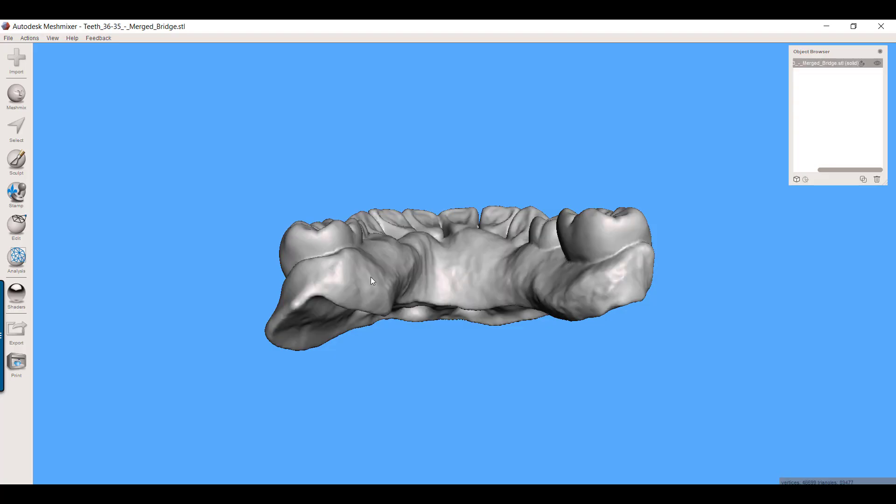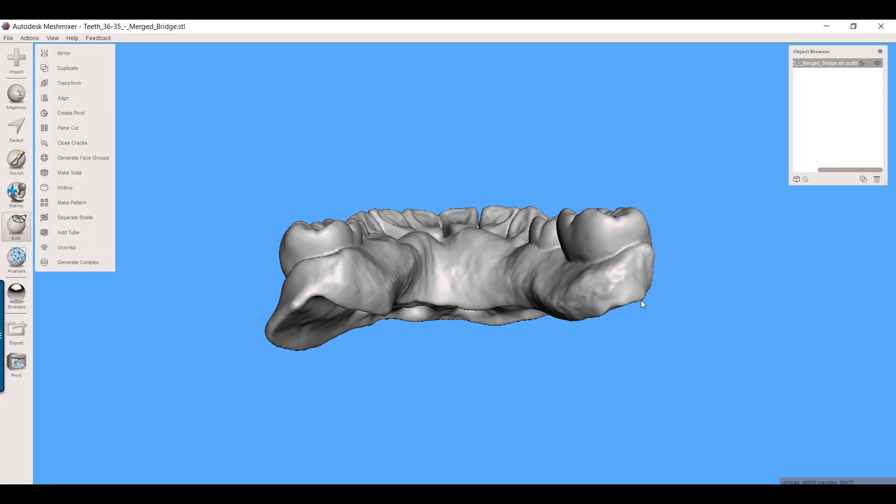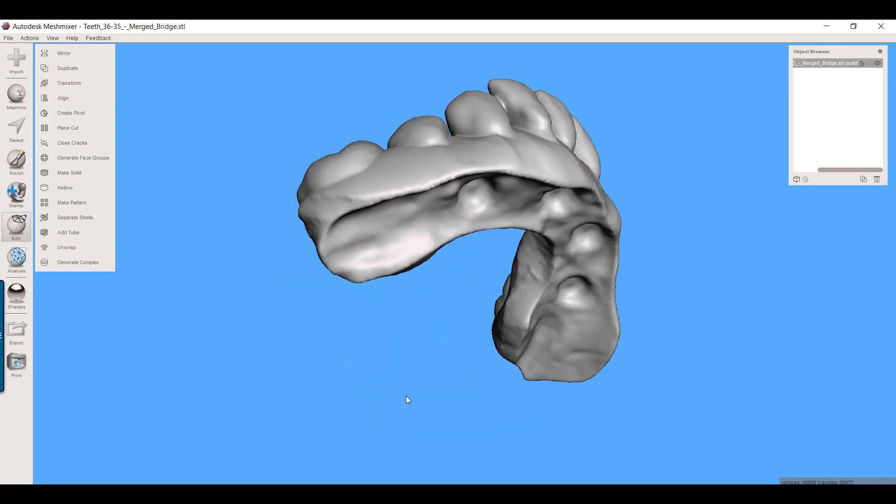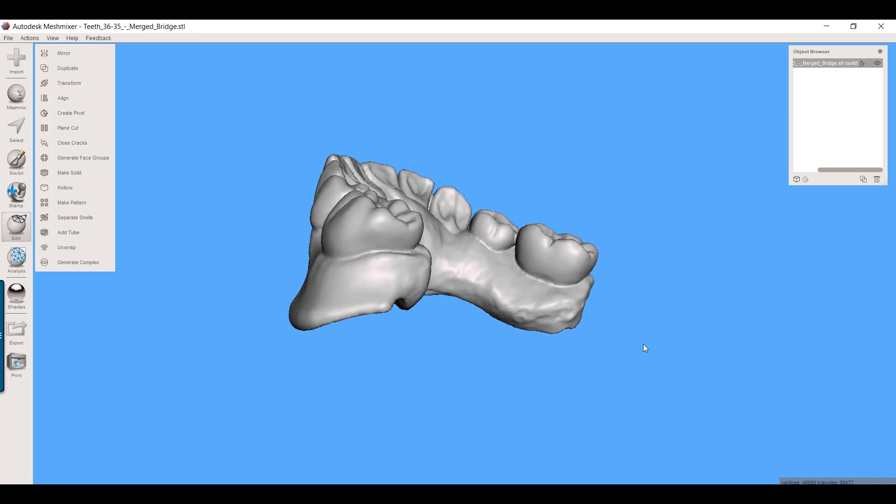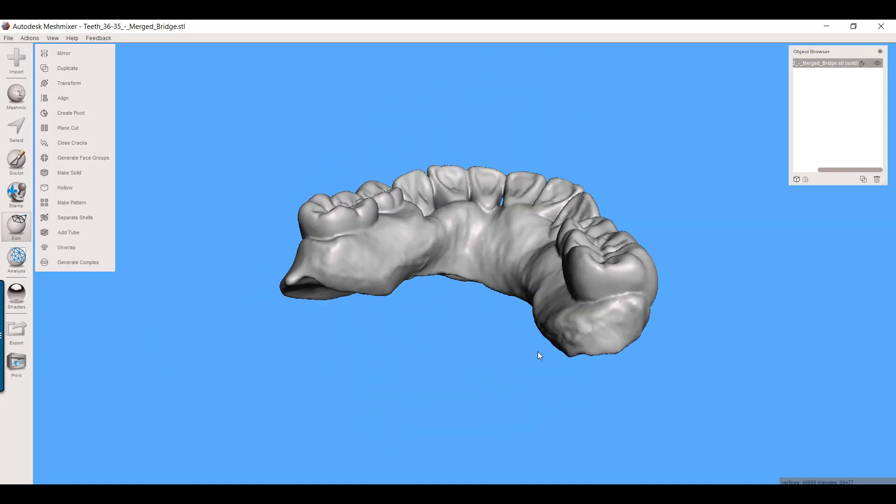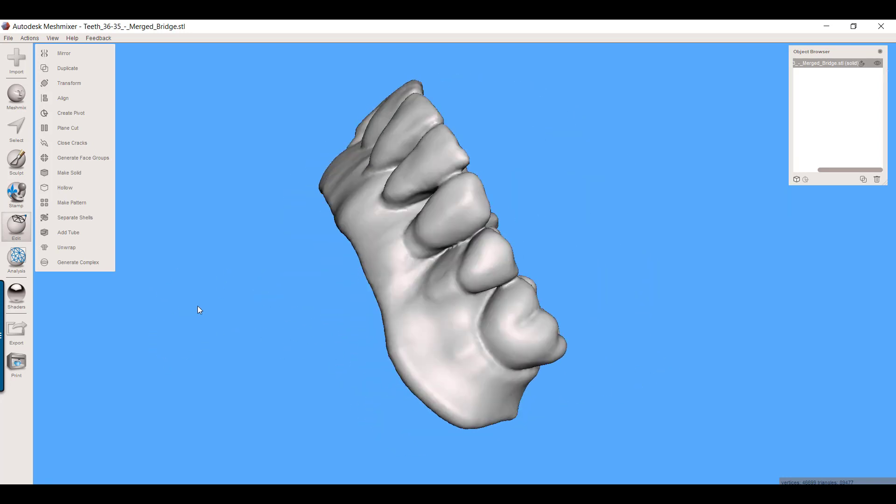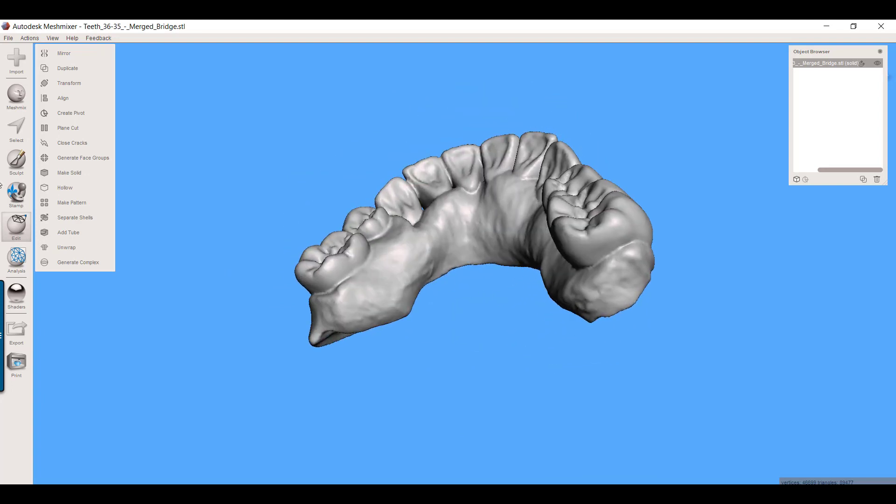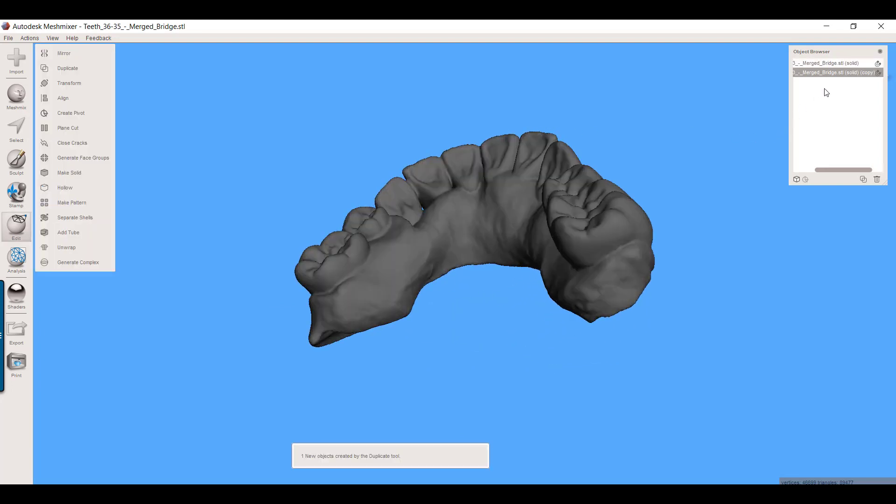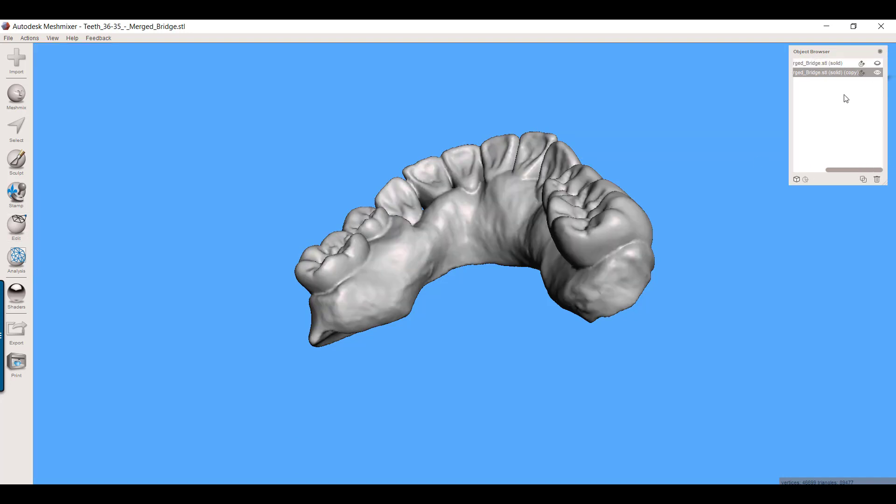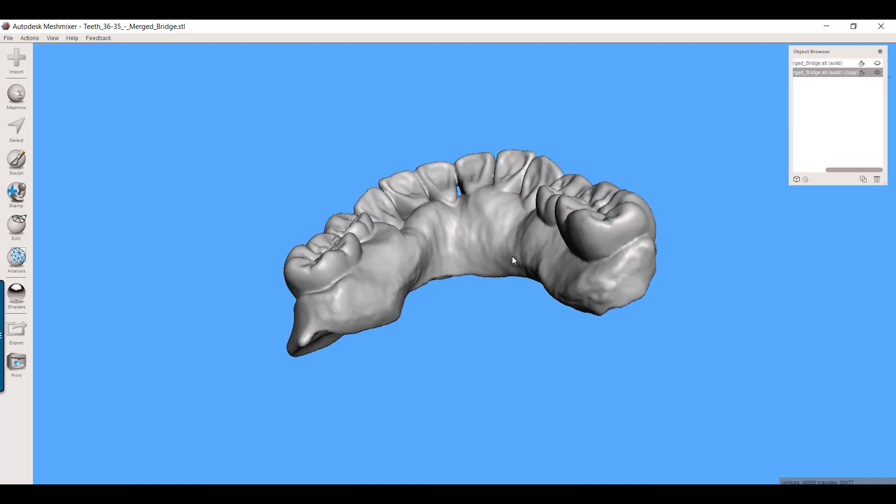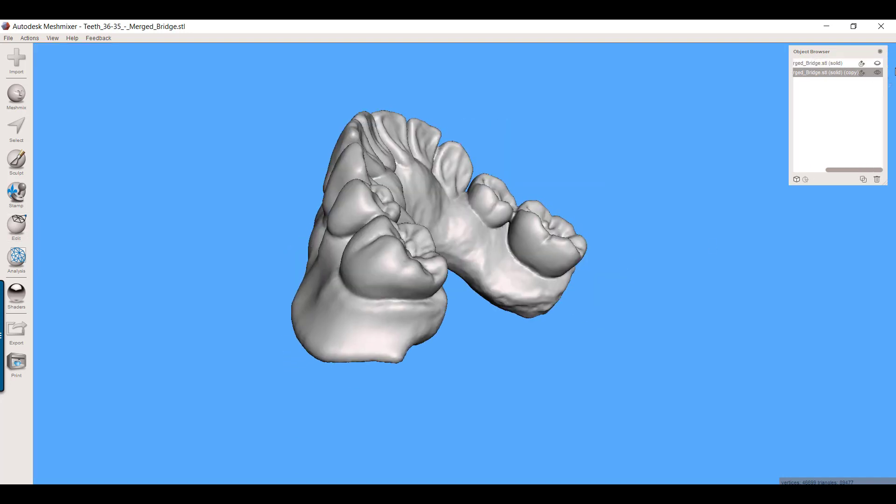Let me just show you, there's a dozen ways to do this. I'm going to just show you one of them right now. The first thing I'm going to do, I always just start with my bridge. This could have been designed in Exocad, in 3Shape, in the Blue Sky Bio denture module, it doesn't matter whatever you want to do. I'm going to always start by duplicating this because I want to have one that I can come back to that I know is unaltered.